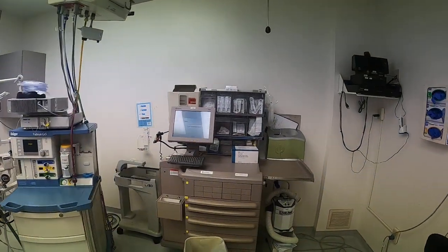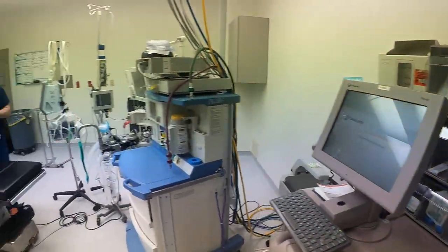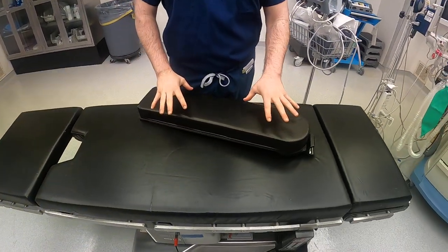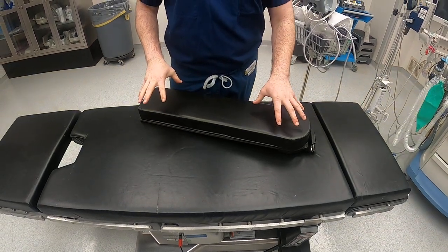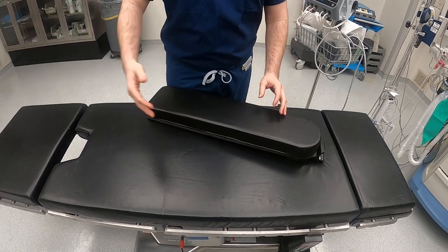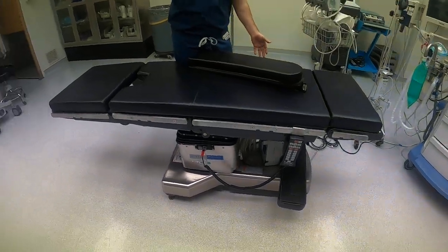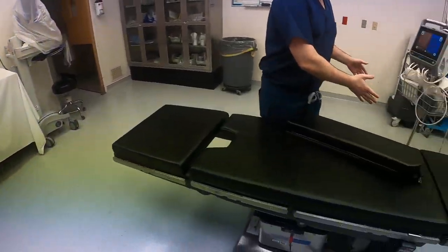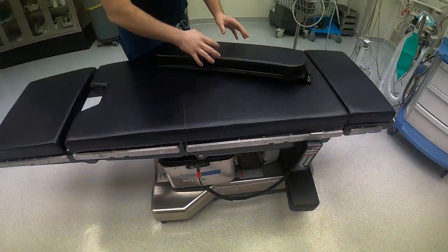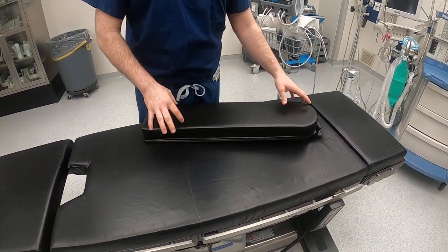Next, make sure you know how to put on an armboard — for some reason this is a very difficult part of the OR for a lot of people. Usually the armboard on the outside — not closest to the door — is already attached. The other one is open so the bed can come up, the patient can come over, and then that armboard can be attached.